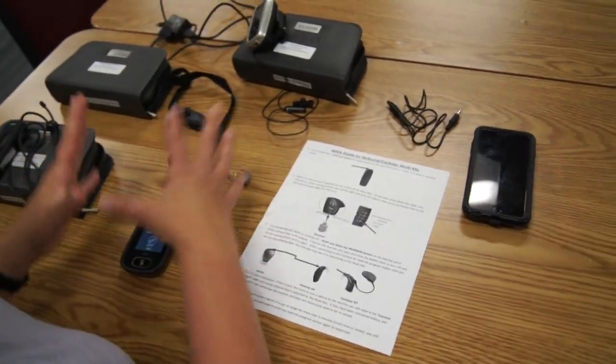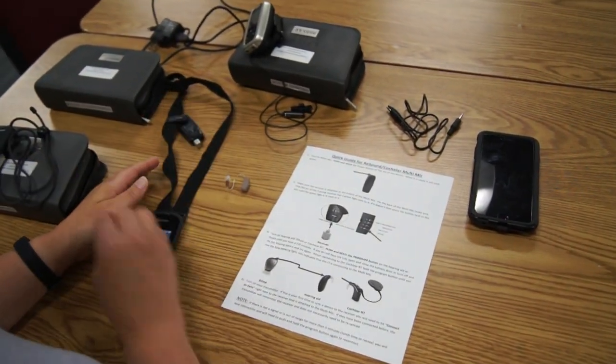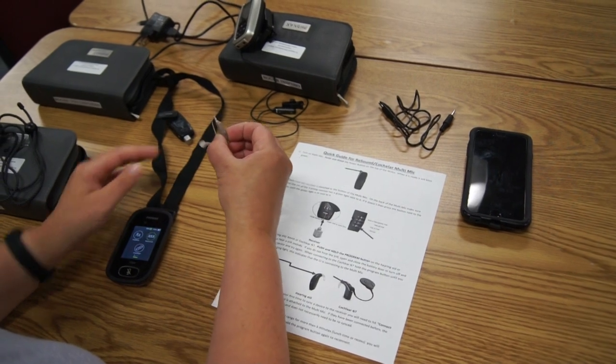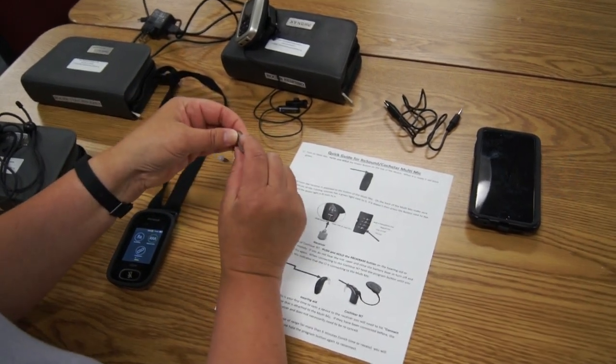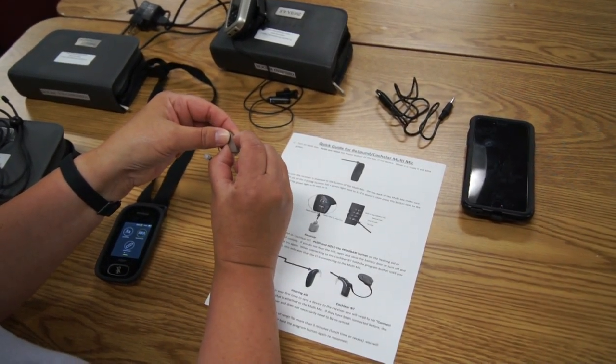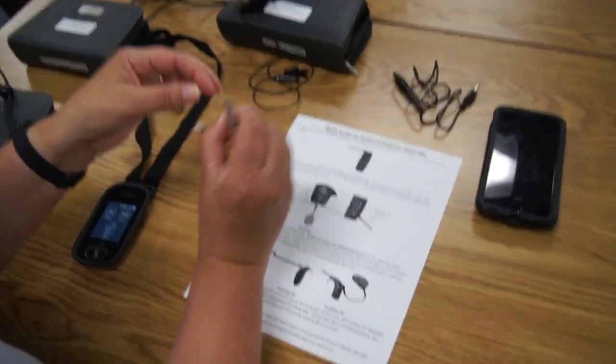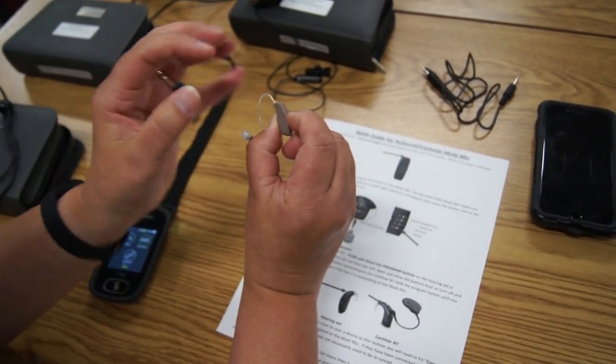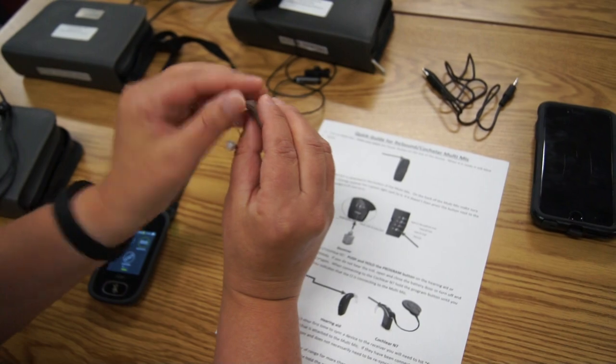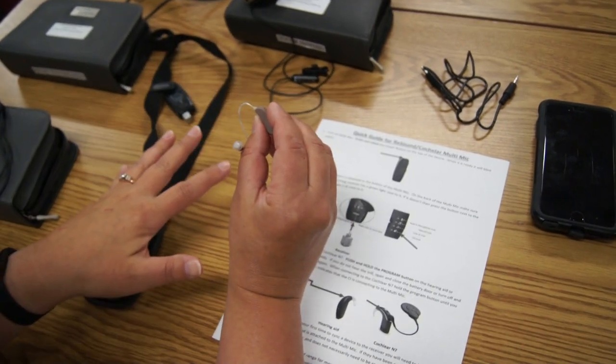If they have a hearing aid, there's going to be a button on here. You're going to hold that button down until you hear a trill. That's telling it's into the multi mic program, and then it should pick up everything from here.